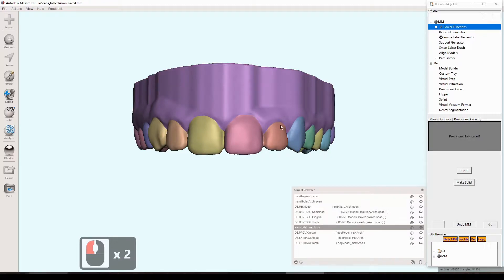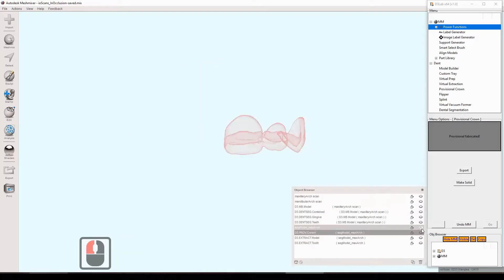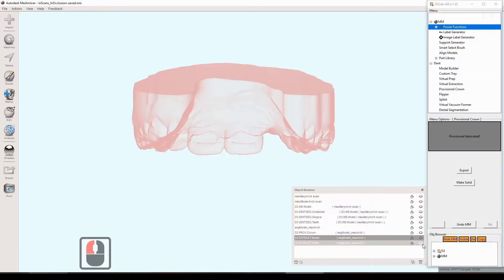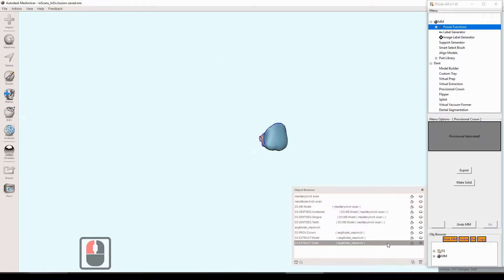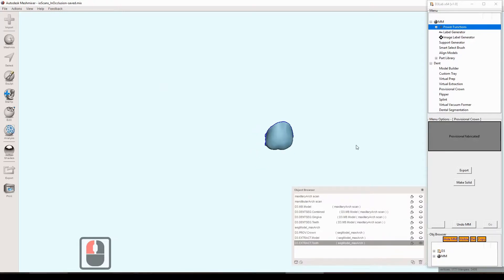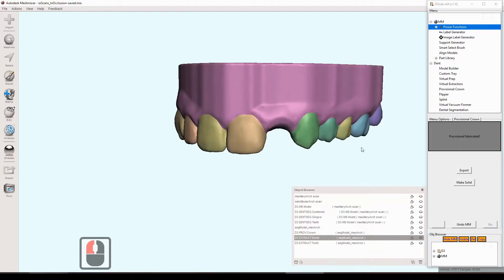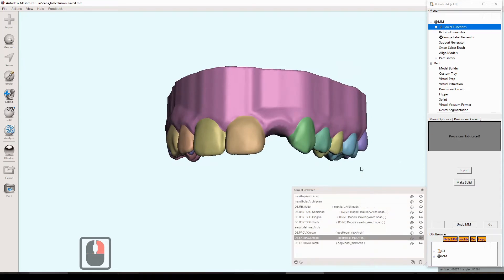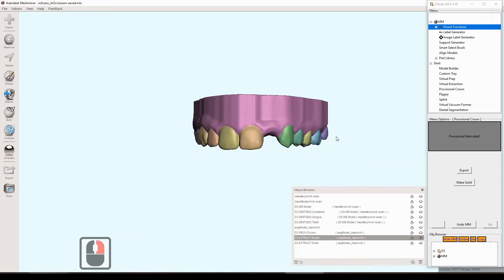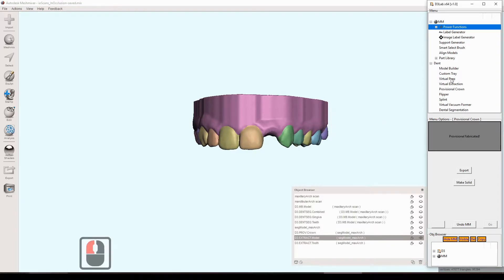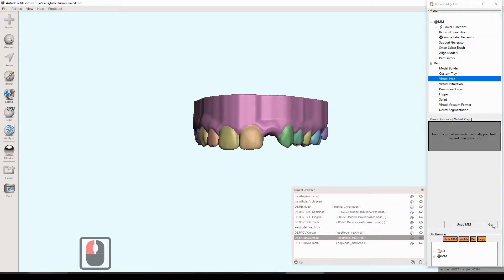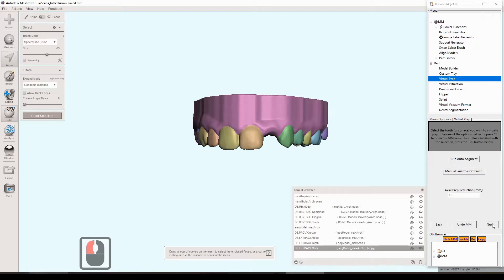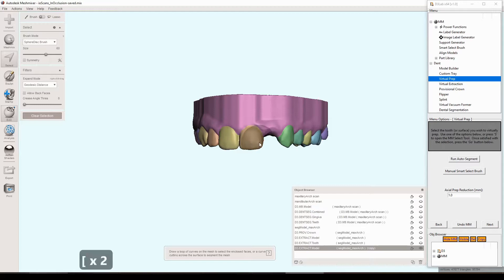So the only other thing here remaining would be the virtual prep tool. I guess we can pull up the same. Oh, but before we do that, this is the other output of the virtual extraction. It also gets the original tooth, gets just made into a new model there. So you can use it for something else later if you want to. You can delete it if you want to. But it's there. I thought it was good to instead of just completely discarding it, at least copy it and then save it so you can use it for something else if you want to. But okay, so virtual prep now. We'll use that virtual extracted model that we kind of repaired with the face groups. And we hit go.